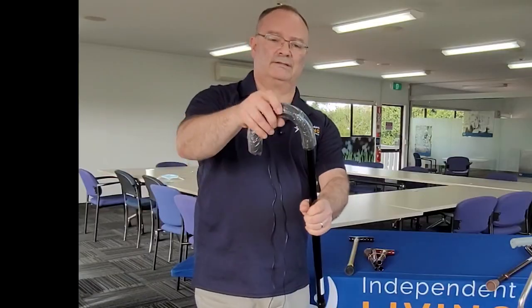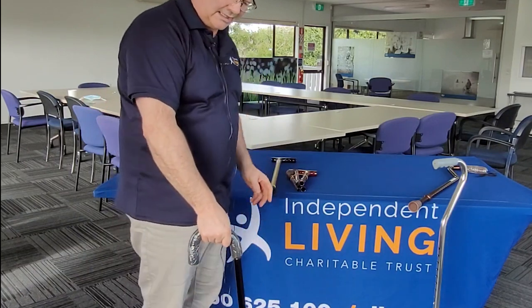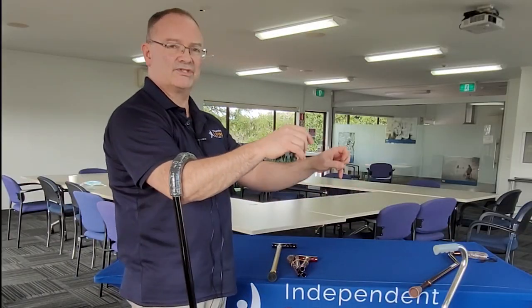This isn't the only sort of handle that you can get. You can also get a crook handle — may not be as comfortable, you can lean into that and it is softer around the wrist, but can be quite handy to hook it if you want to do things as you're standing at a bench.